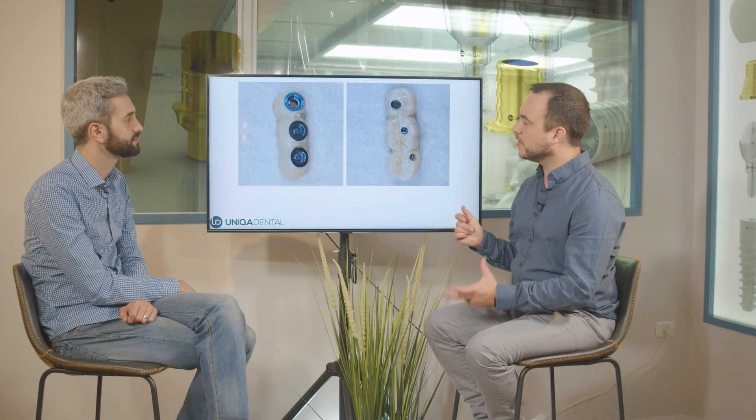If you're using the 3mm sleeves, the screw channel is for the whole screw, so it's much larger. The surface that the screw channel occupies from the tooth surface is very large in percentage and area, and it makes the bridge much more fragile.